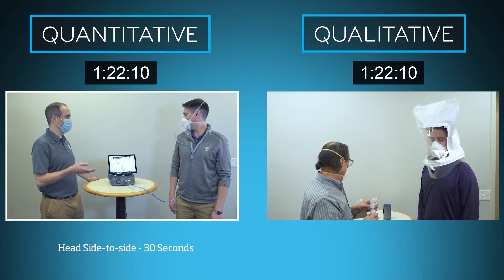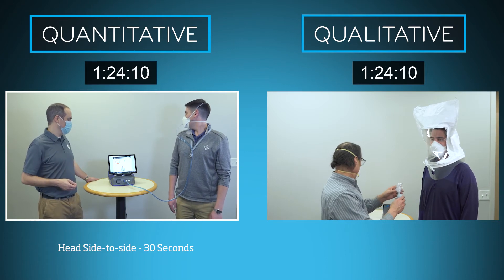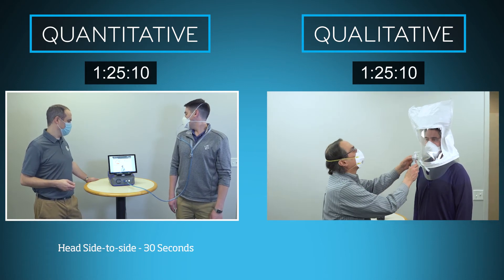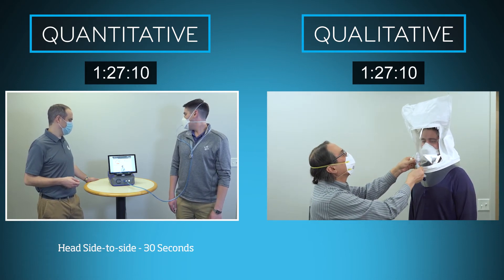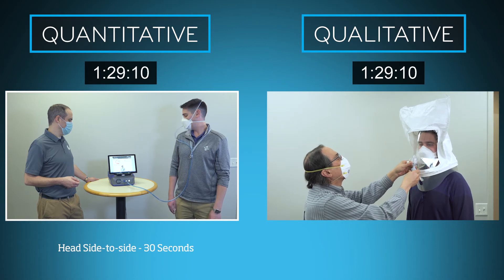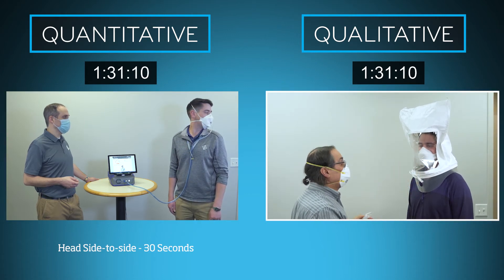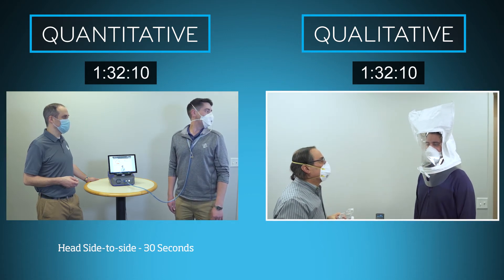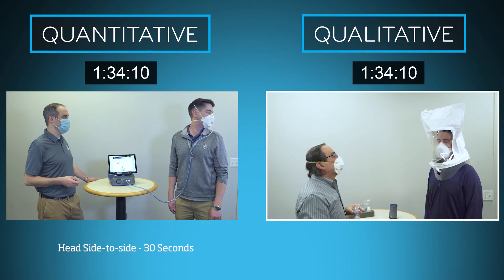Here we move on to the third exercise for the quantitative fit test: 30 seconds of head side to side, with two breaths at each extreme. Meanwhile, the qualitative fit test needs an additional 40 seconds to complete the second exercise.